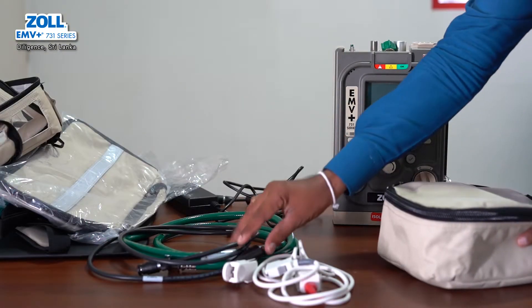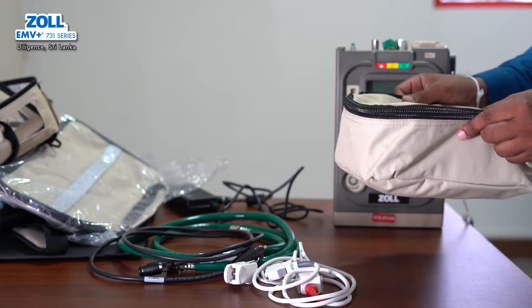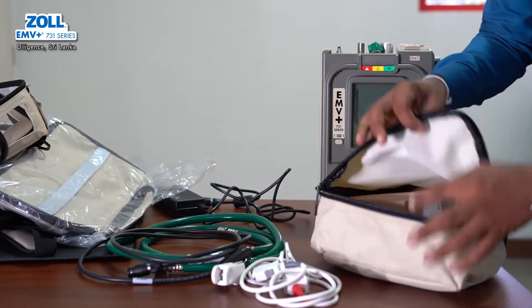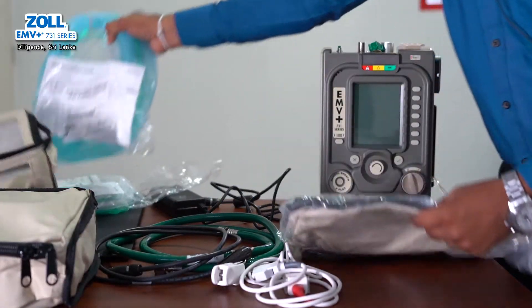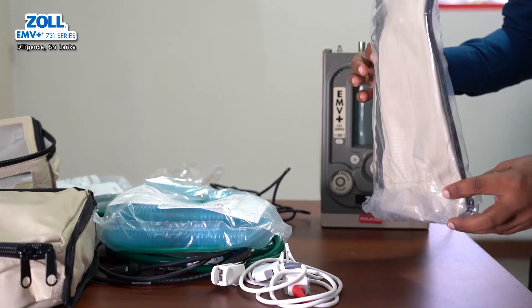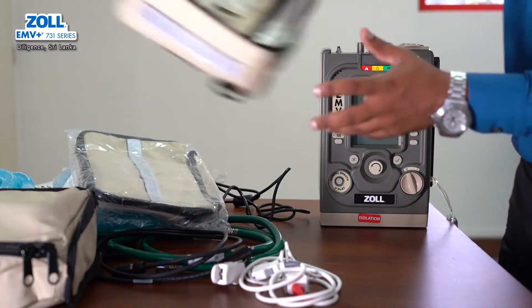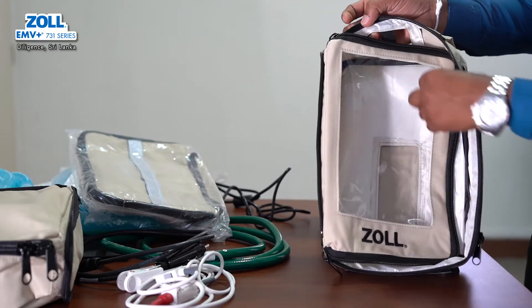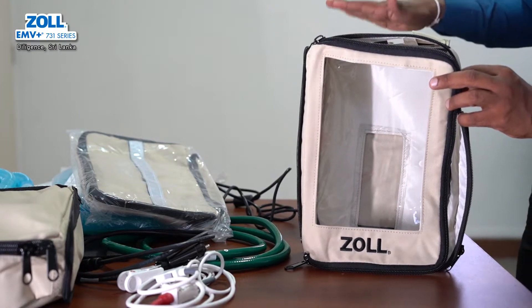You can use the operation guide as well as an operator guide. For the SPO2 probe or oxygen hose, you can use a bag and accessories. You can connect the bag with accessories to set it up. This is the breathing circuit; you can use it with this bag.